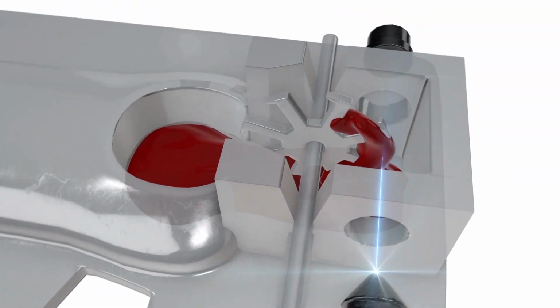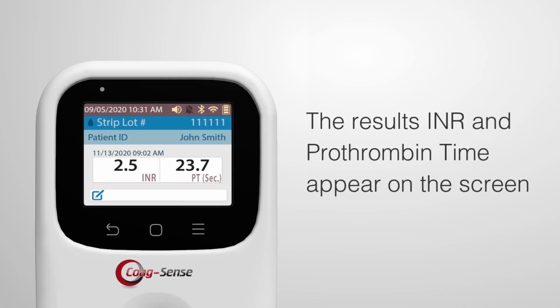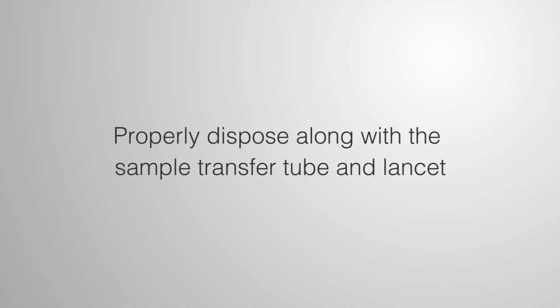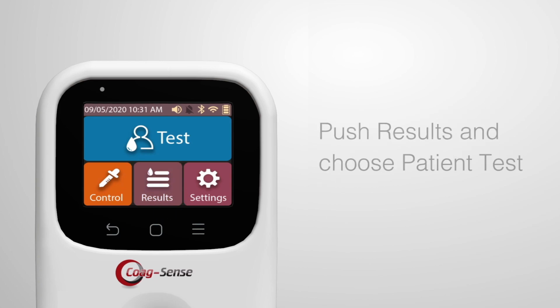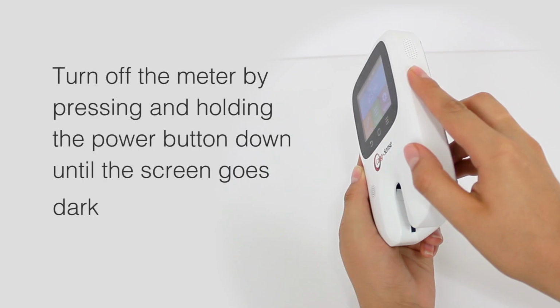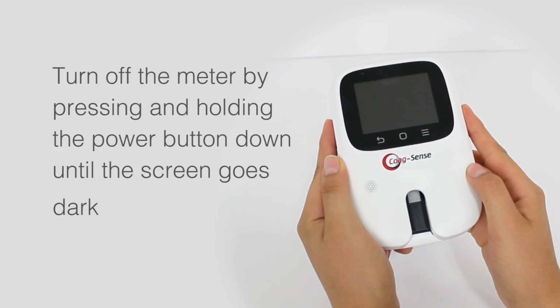When testing is complete, the meter beeps once and the results, INR and prothrombin time, appear on the screen. Remove the test strip and properly dispose of it along with the sample transfer tube and lancet. The test result is recorded in memory and it can be found on the main menu using the Results button. Push Results and choose Patient Test. Turn off the meter by pressing and holding the power button down until the screen goes dark.